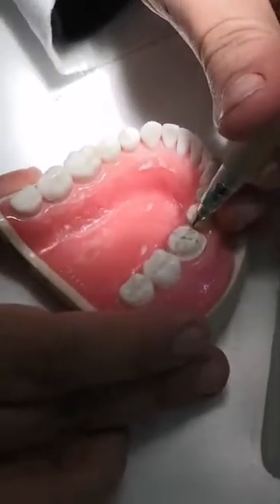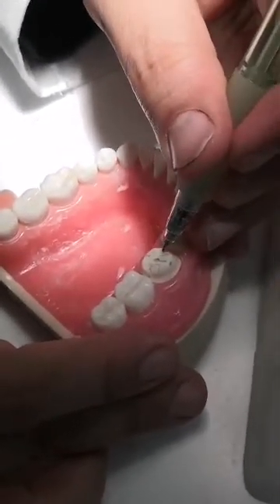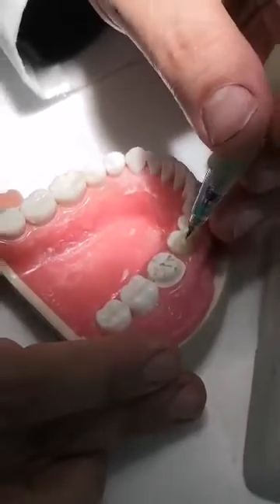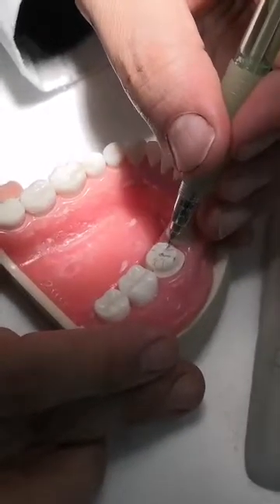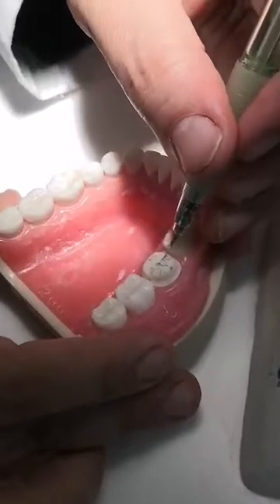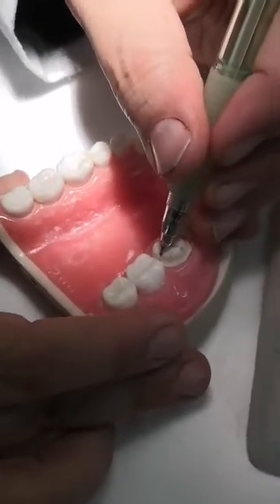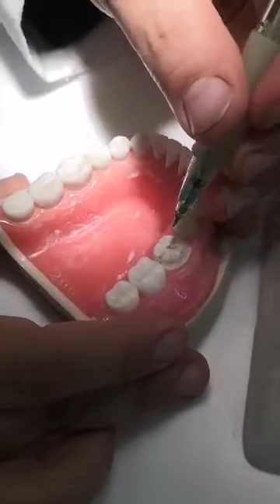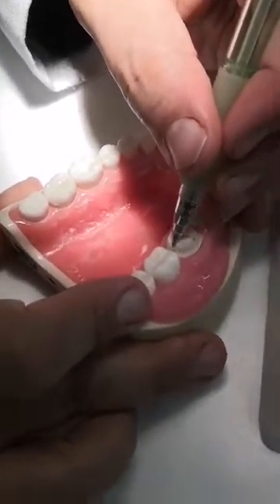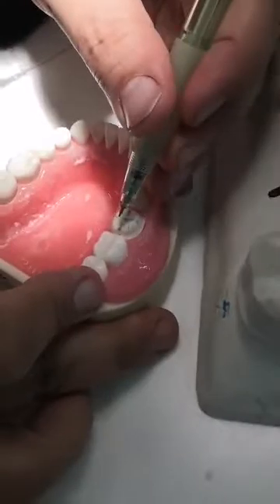My second critique is of the marginal ridge area. Here I find the marginal ridge open — nothing is distracting me from going from this area to this area. It's totally open, totally flat. Good. But here I have like a step. I feel it with the tip of the pencil. I could feel that it's a small step, so you have to open it.